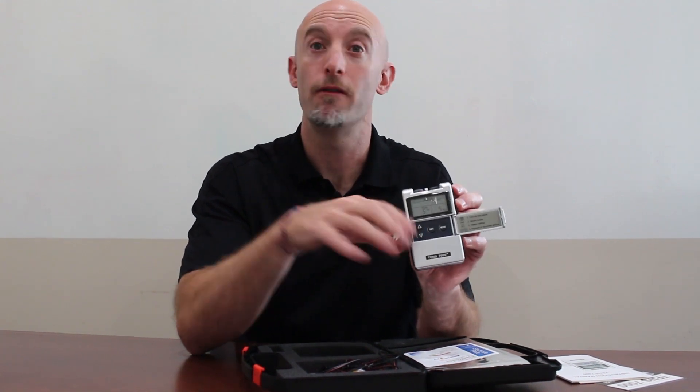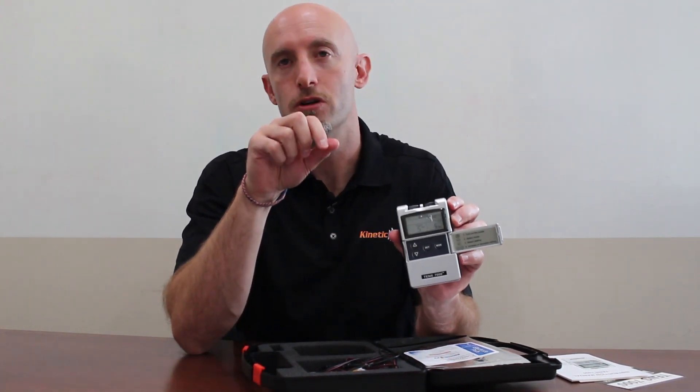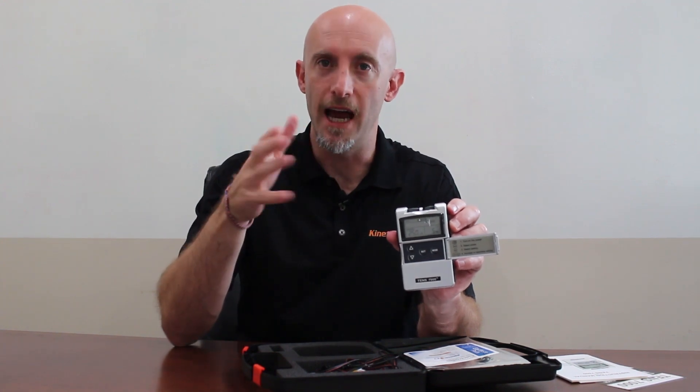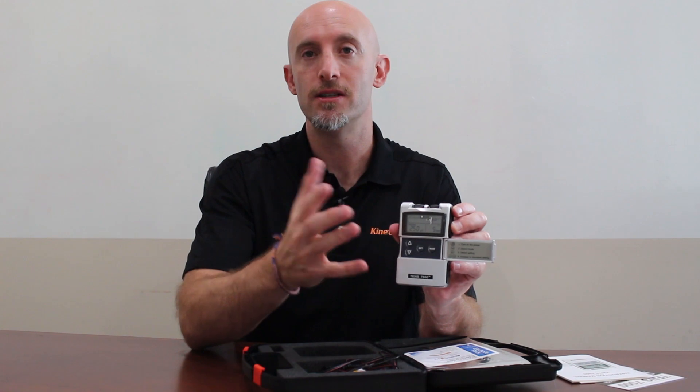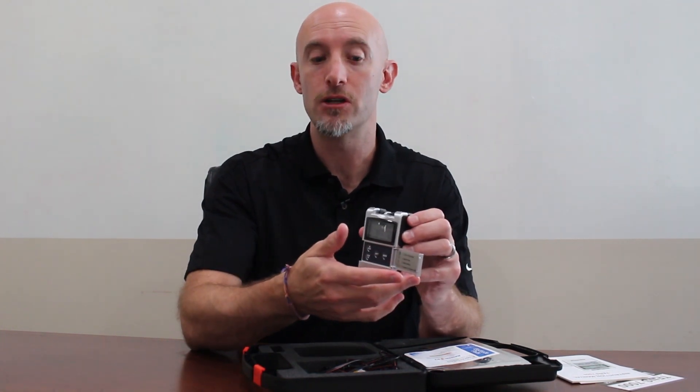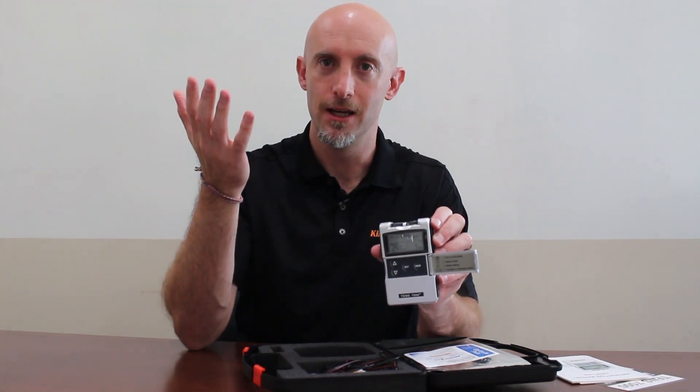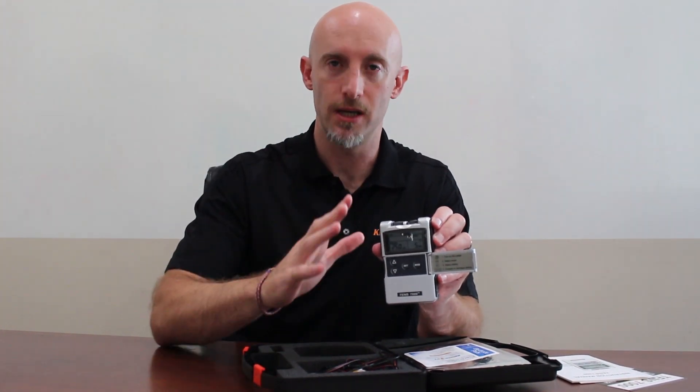The time is already set for five minutes. We're going to build upon this — initially start with five minutes and slowly build over a month up to 25 minutes, adding five minutes a week. A simple way to do this: after five minutes of treatment, turn it off and turn it back on for another five minutes. You don't have to worry about changing any parameters.